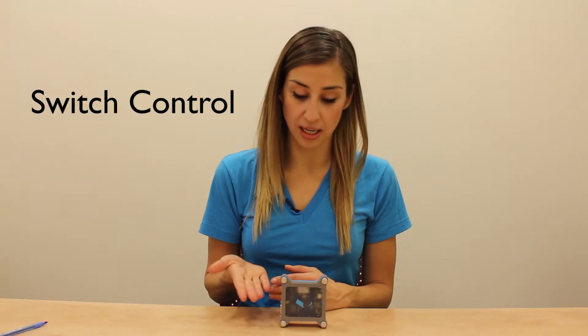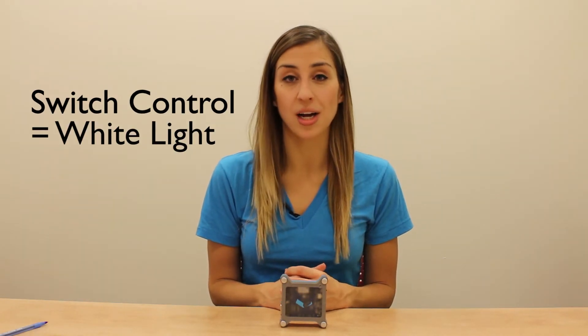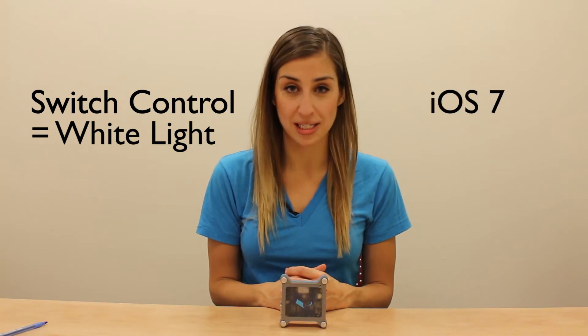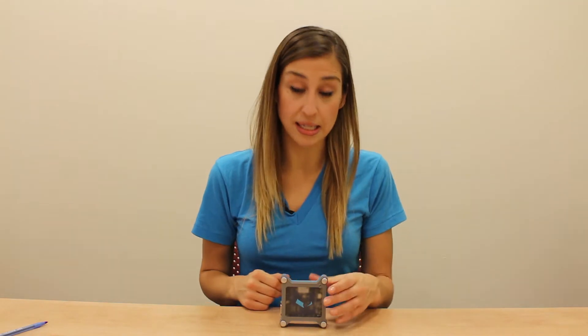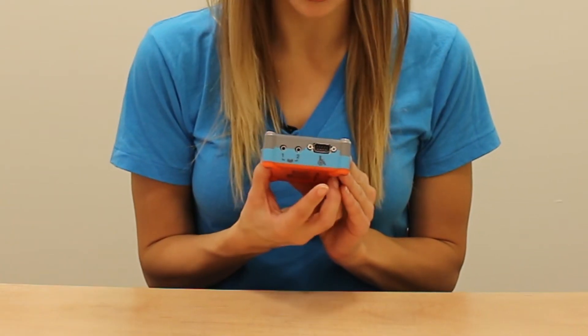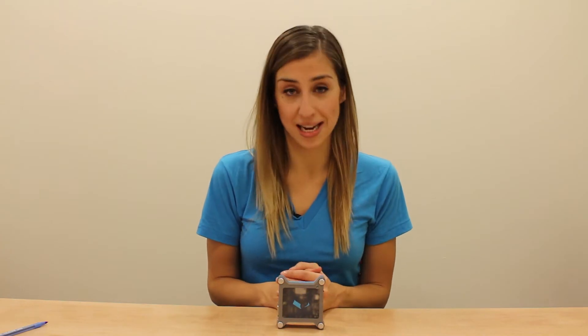With the Tecla Shield we have six different modes depending on your device and your needs. The default mode is switch control, indicated by the white light. You'll need switch control if you have an iOS device running iOS 7 or 8. In switch control you can assign the six inputs on your Tecla Shield — two switch ports and four from the wheelchair port — to any switch action. This could be selecting an item, moving to the next or previous item, or calling Siri.